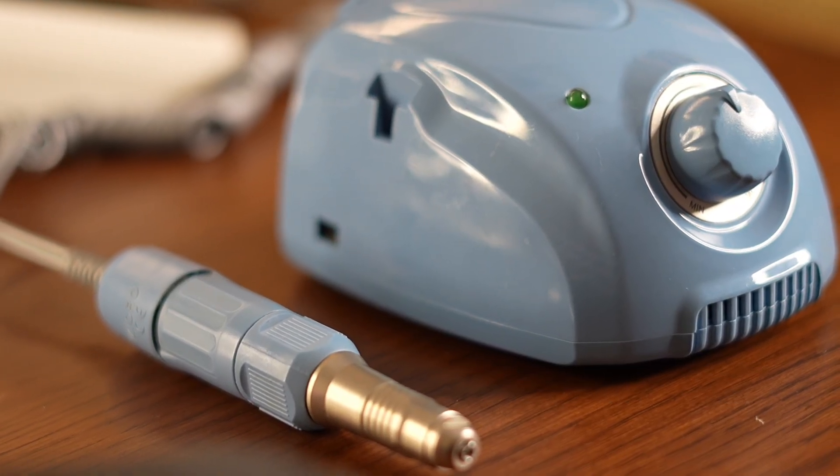Over here you have your standard rotation machine. This is used in many practices around the world and even some of the best doctors prefer it. However, the rotation machine can have some drawbacks — the torque can sometimes damage the follicles, especially for those with difficult hairs to extract like curly hair or people with longer follicles. It is much faster than the manual device, so you can reach three, maybe even three and a half thousand follicles in a single session.